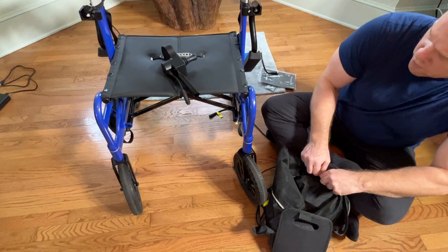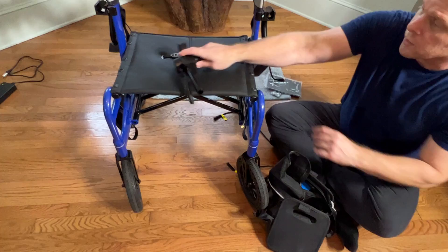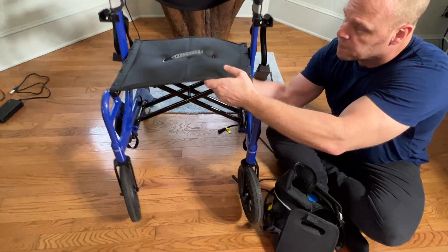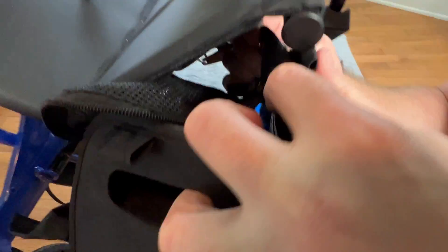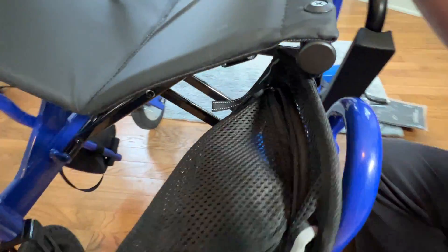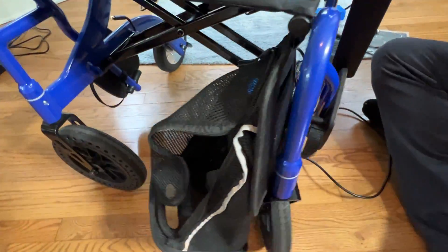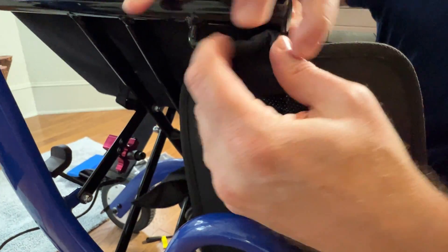What we're going to do is get these parts connected to the actual device. First I'll show you how the basket actually connects. We have a couple of little loops on this basket and I'm just going to loop one side of the basket right around the little metal pole to give me support, and I'll do the same on the other side so the basket isn't just flopping down. Getting this basket on and off would be easier from the other side, but I did it without any problems.